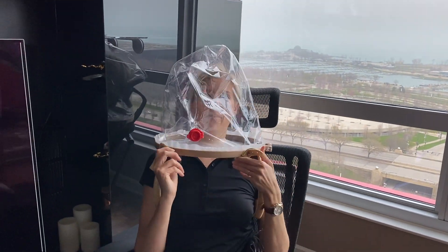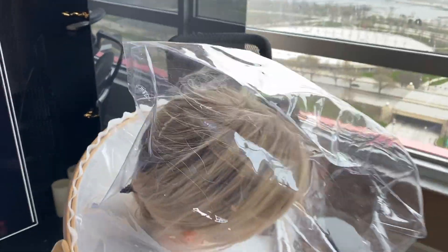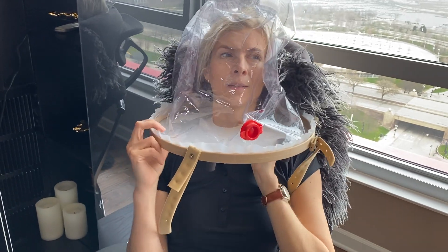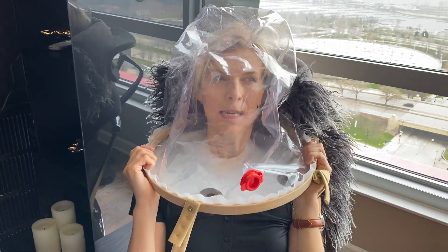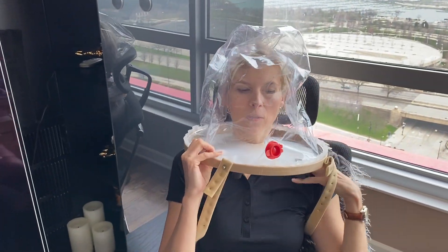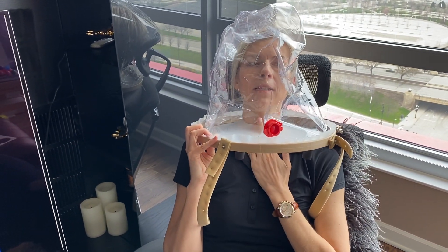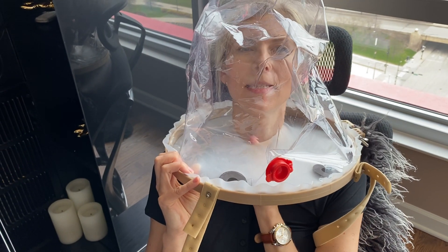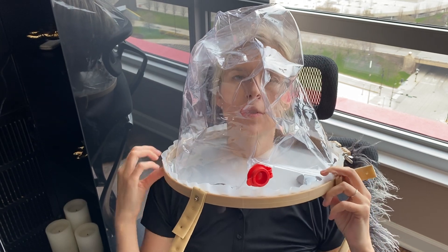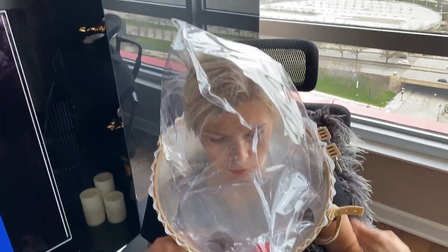If I'm going to lay back, it feels okay. For that reason, I have a pillow here. You definitely will need to put some towels or pillows behind, because if I'm pressing too hard, I feel like I'm getting an air leak. There is an opening around the neck just because the ring is hard and it's pushing forward from me laying back.